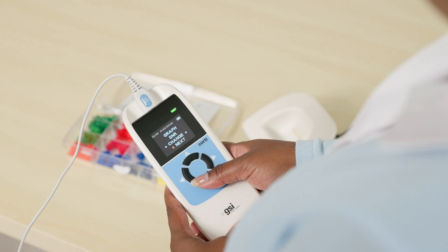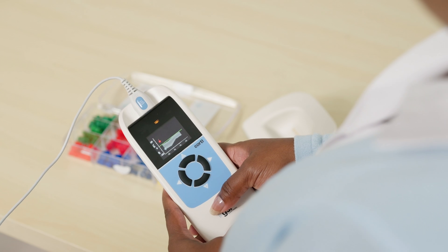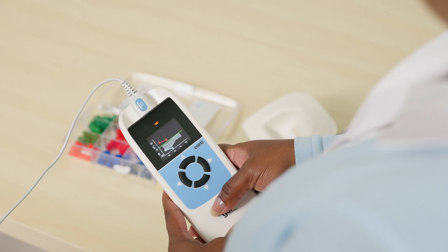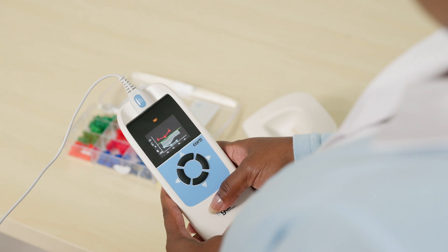The graph style menu allows you to select the way the test results appear on the display. The SNR graph view shows the signal-to-noise ratio for each OAE in a bar graph. The value graph shows both the OAE and the noise levels for each frequency in a more detailed view, like an OAE gram. When value graph is selected, an additional menu item called norms becomes available. When norms are on, a shaded area will appear during testing for eligible DP-OAE protocols. The norms have no effect on the overall test results and are for display purposes only.